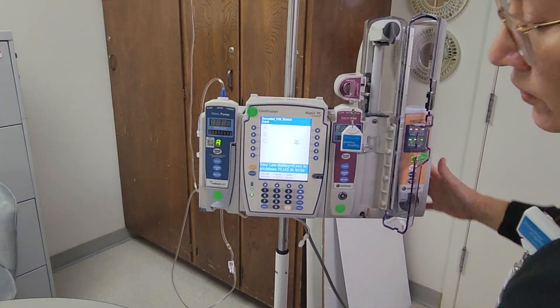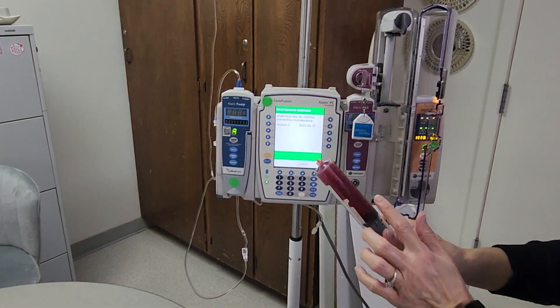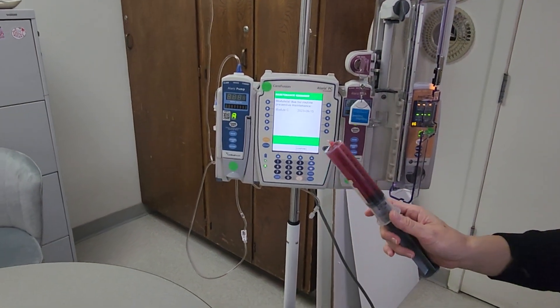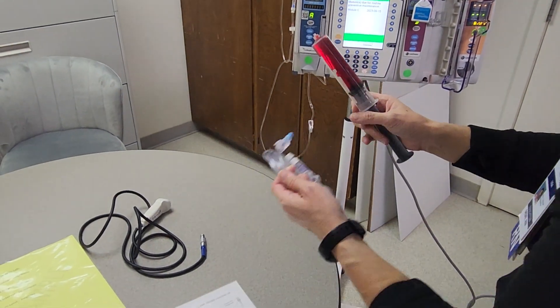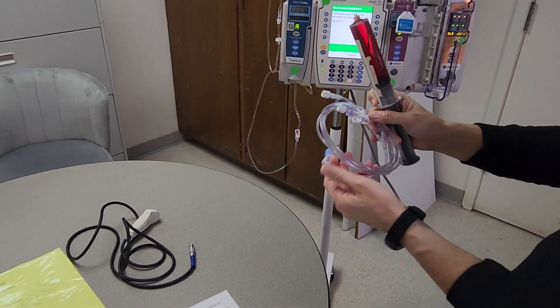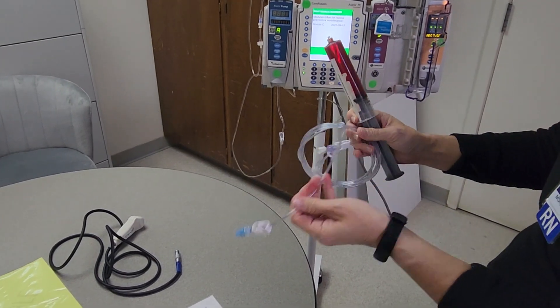Put the key in and then get your medication syringe and attach the PCA tubing. Again, you will be doing this with a second nurse. We do not prime the tubing manually — we prime it on the pump.